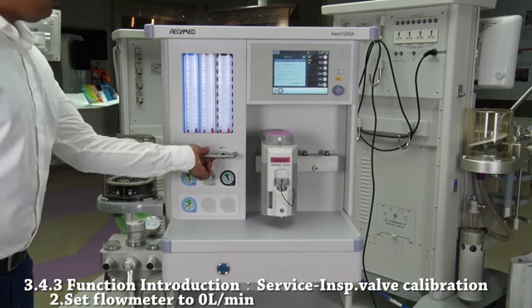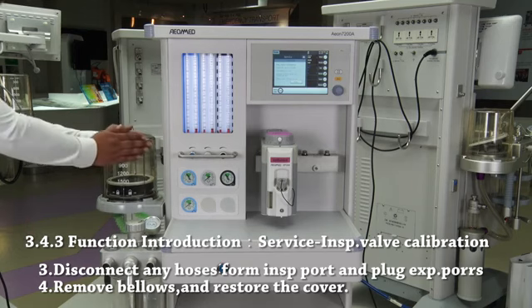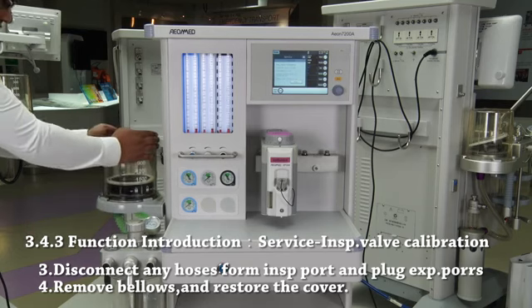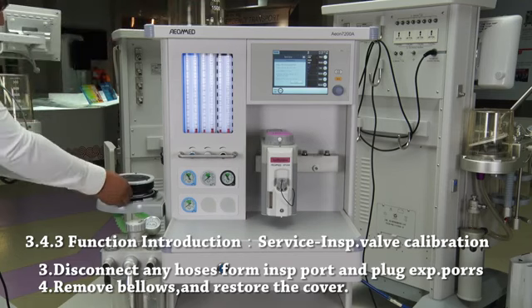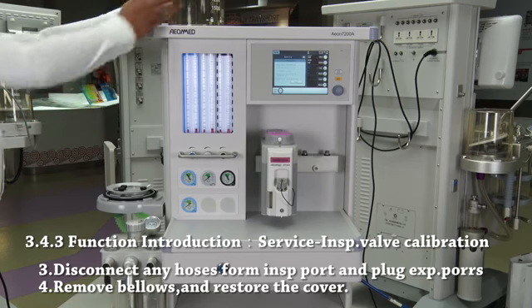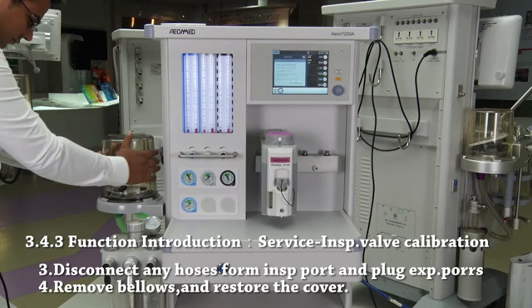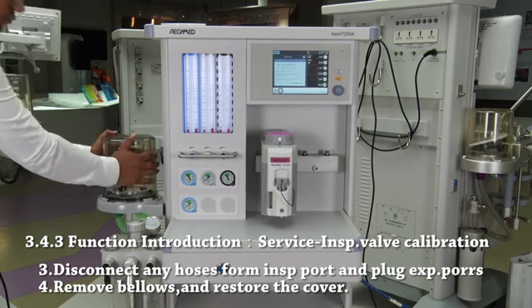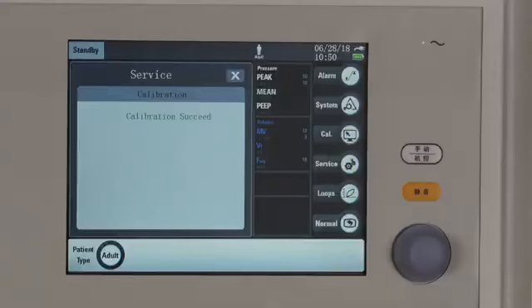Set all flow meters to 0 liters per minute. Step 3. Disconnect any hoses from inspiratory port and make sure to plug the expiratory port. Step 4. Remove bellows and restore the cover. Press start. Succeed.